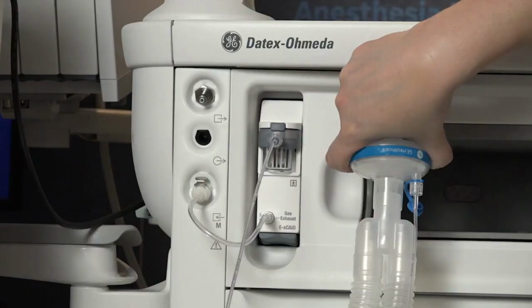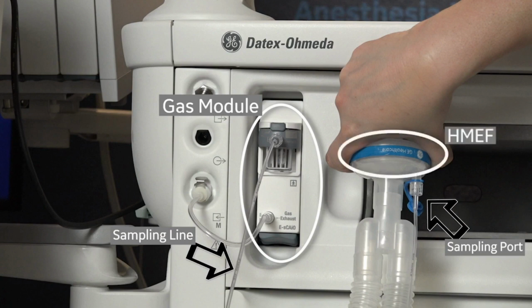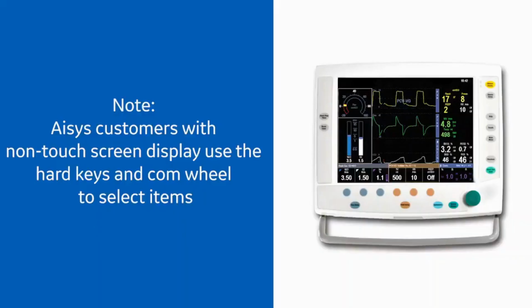When using a GE Healthcare respiratory gas module, make sure to connect the sampling line to the sampling port proximal to the anesthesia device with respect to the heat moisture exchange filter, or HMEF. Follow the on-screen instructions and select Full Test.